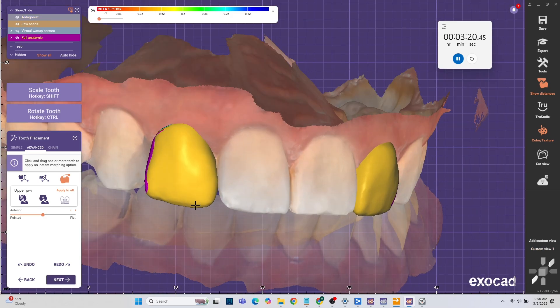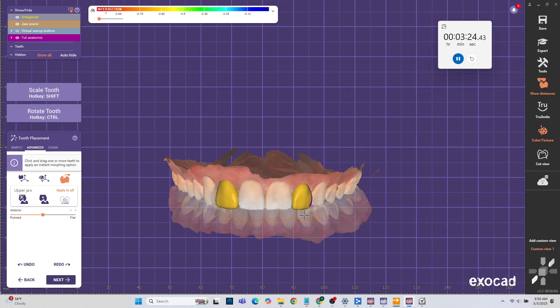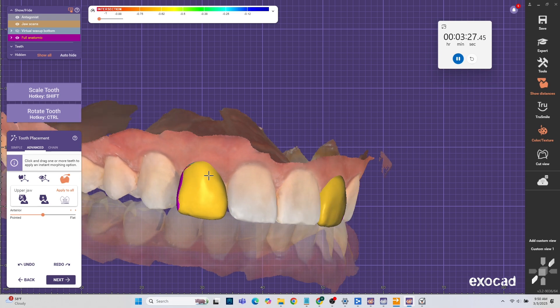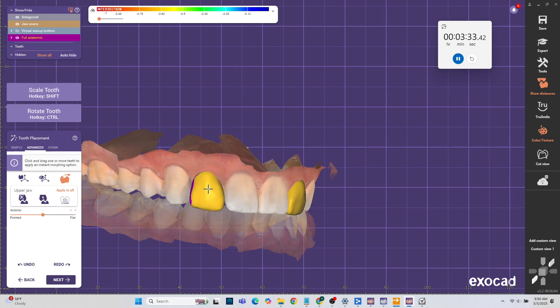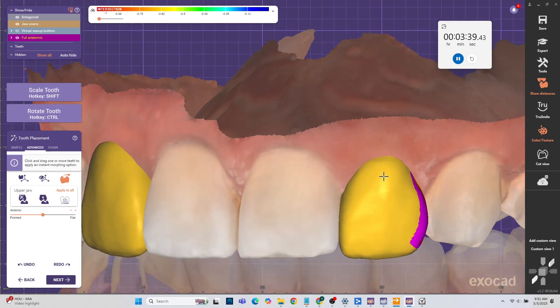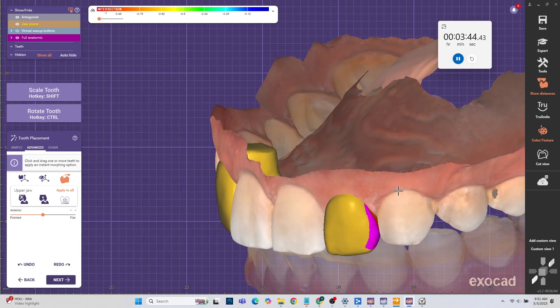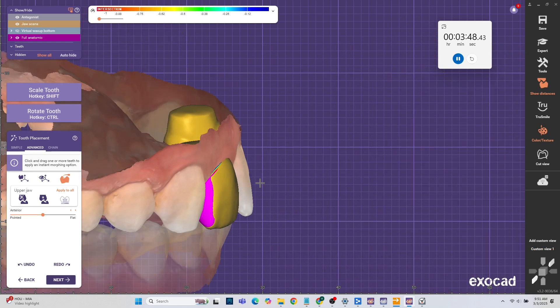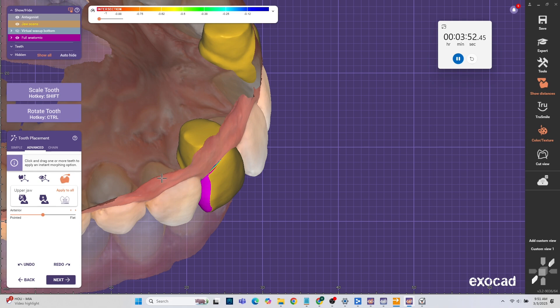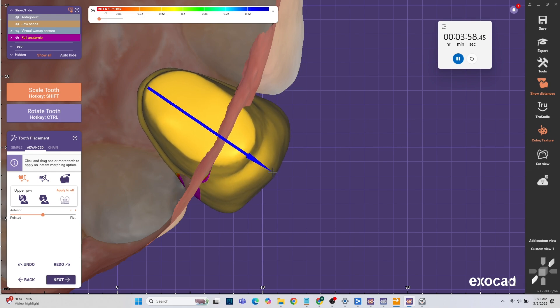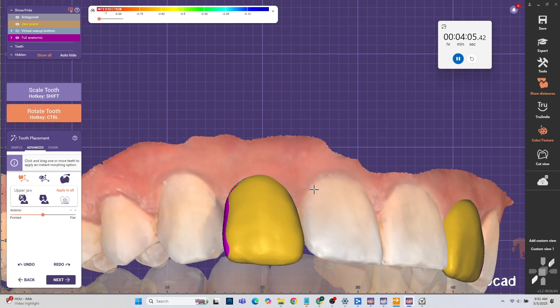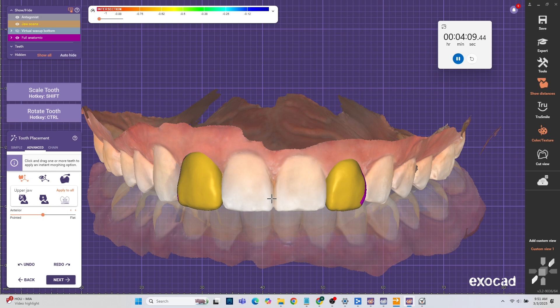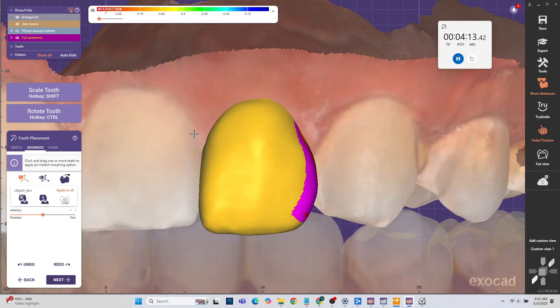I'm not focusing exactly on tooth. If you are focusing on tooth, well that would be a little extra video so you can actually do a wax up, a proper wax up with including the gingival reduction. Right now I'm just free forming. I really love the free form in the tooth placement part of ExoCAD. It maintains the anatomy of the tooth so much better than when you do it in the actual free form stage. This is actually a cool little trick. When you do the tooth placement you just go to advanced and hit the little thing that looks like a free form. It's the third option.